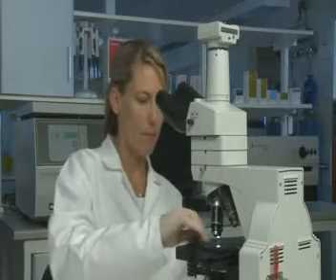Then re-suspend the sperm pellet. The sample is now ready to use.